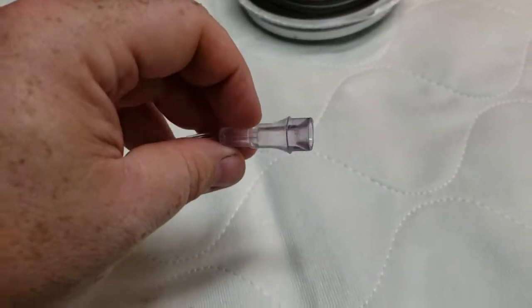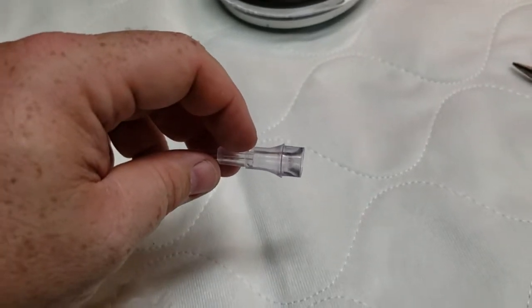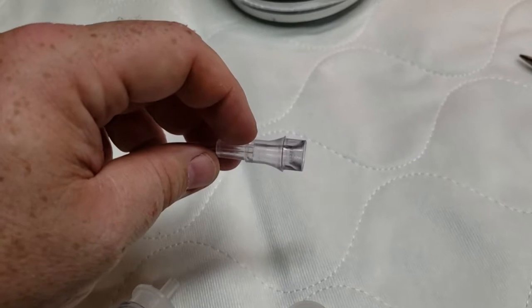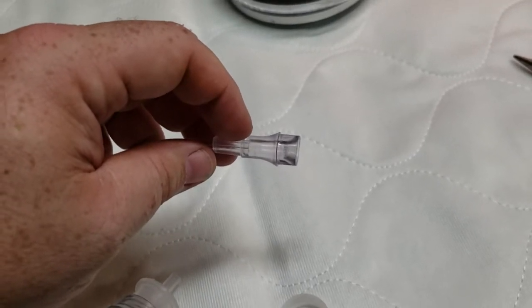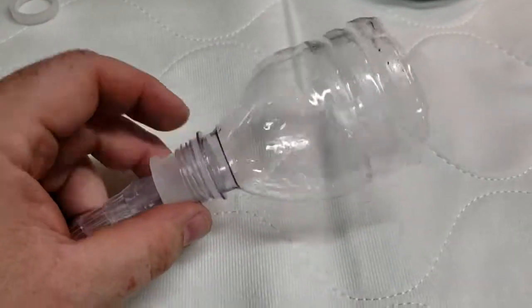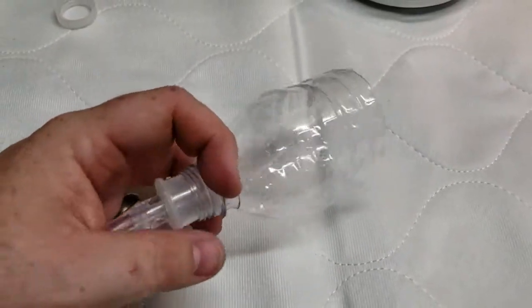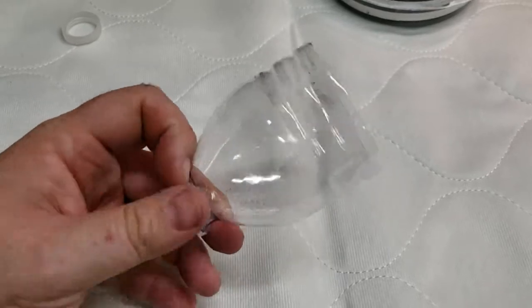I had the adapter, so it was easy to do, and I just wanted to show you a couple of options there for making this homemade oxygen cone. Next thing I'm going to do is connect the end of the tubing to the homemade oxygen cone. That is what it ends up looking like with the adapter piece there, and you can pressure fit that in there a little tighter if you want — it fits pretty snug.